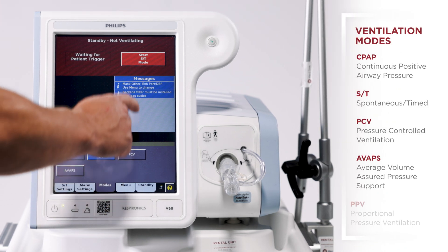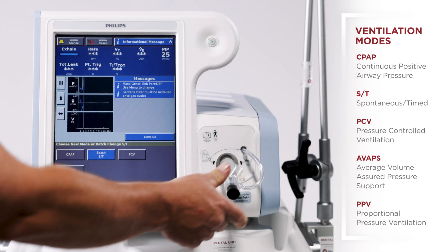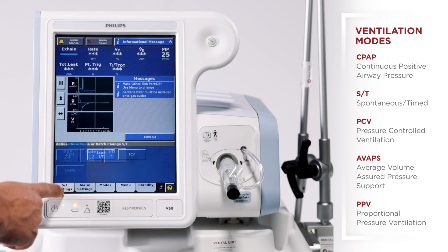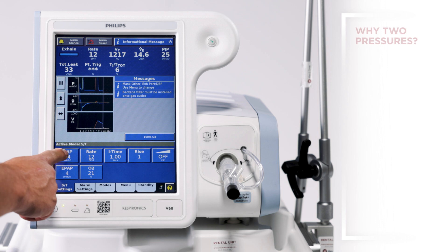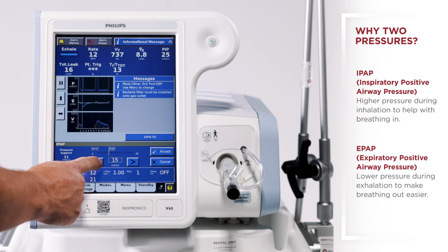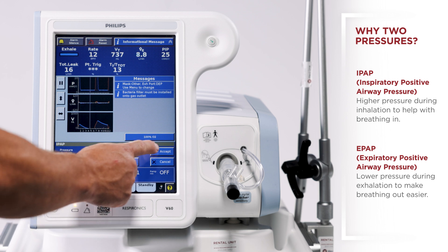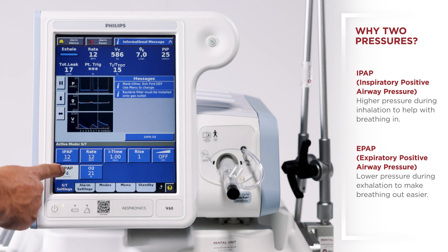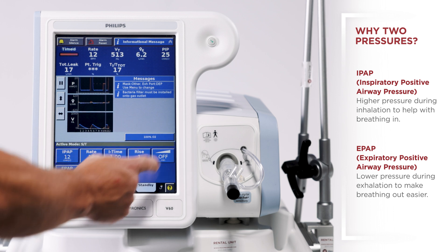We're going to simulate an ST mode. From here we're going to go into our ST settings. We're going to set an IPAP of 12. We're going to accept it in. We're going to have an EPAP of five.